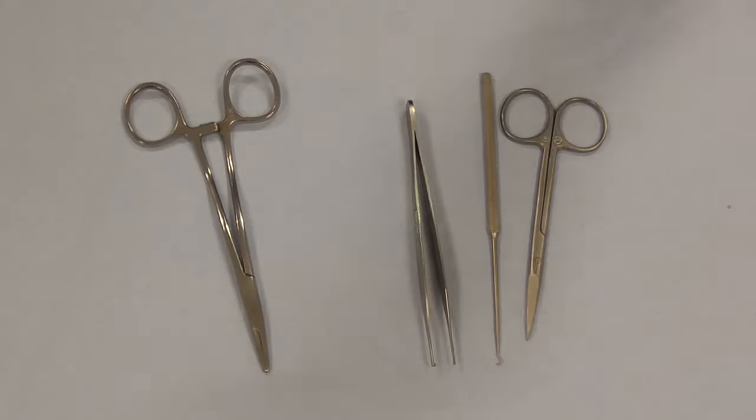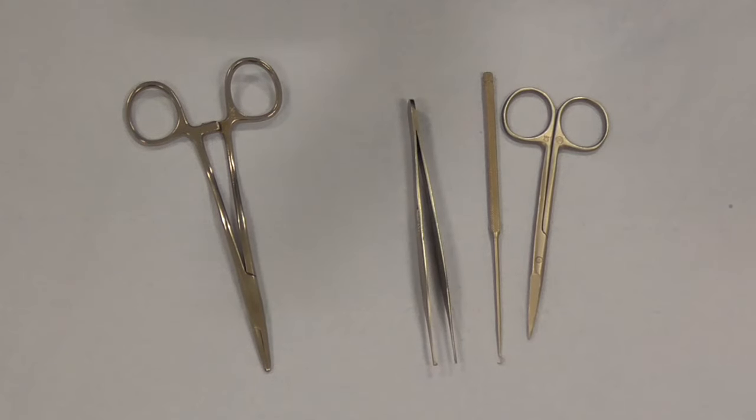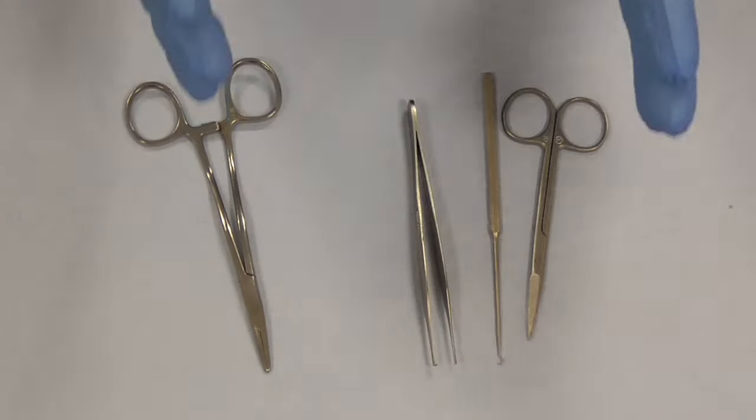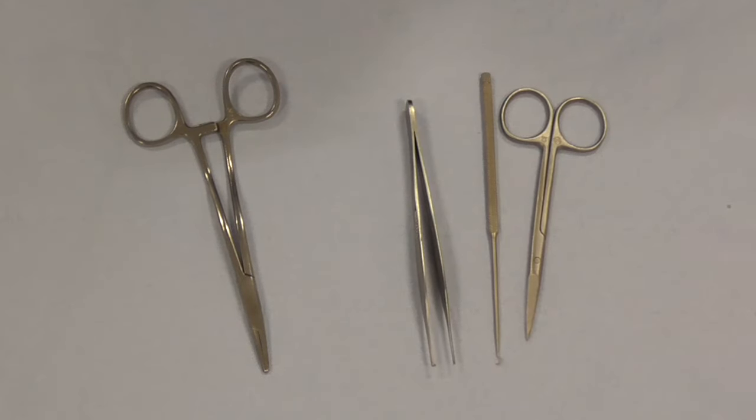The very first thing before we dive into the suturing is to know our kit and know how to handle the kit. So there are three, possibly four bits of kit that are hugely important for suturing.